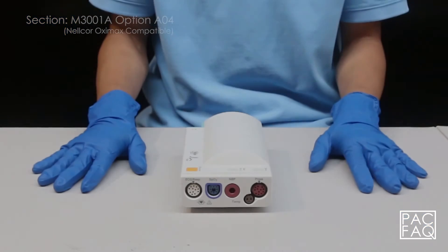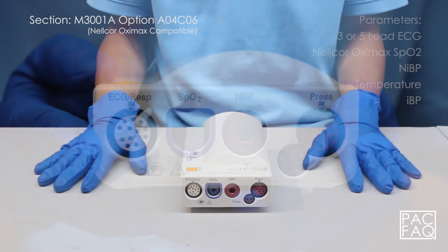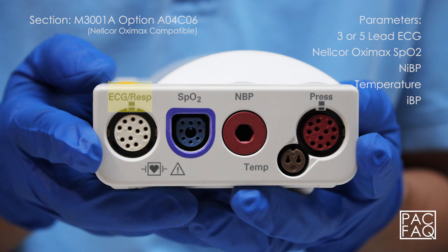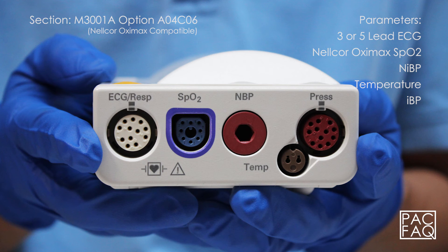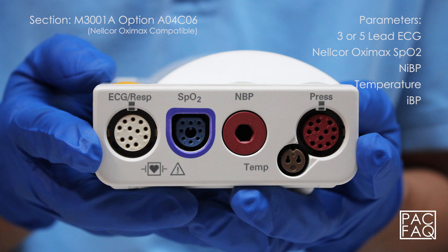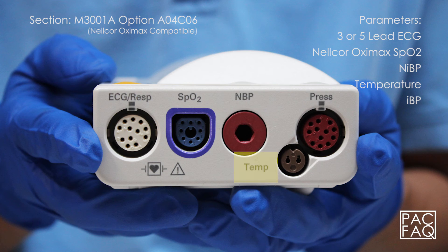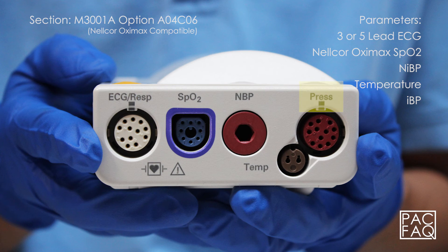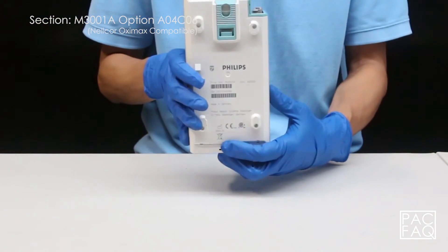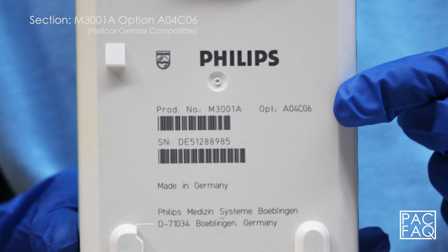Here we have option A04 C06. This unit comes with parameters 3 or 5 lead ECG, Nellcor OximaX SPO2, non-invasive blood pressure, temperature, and invasive blood pressure. The product identification and serial numbers are located on the bottom of the unit.